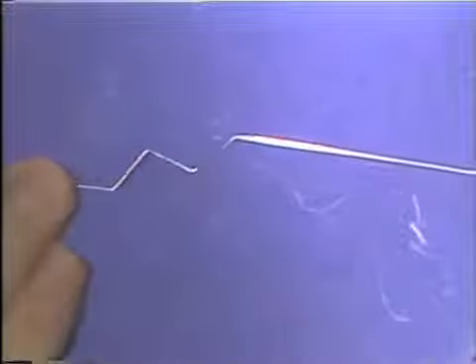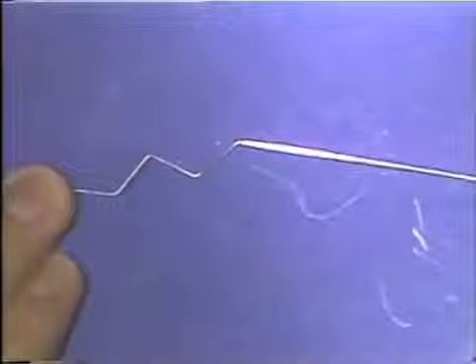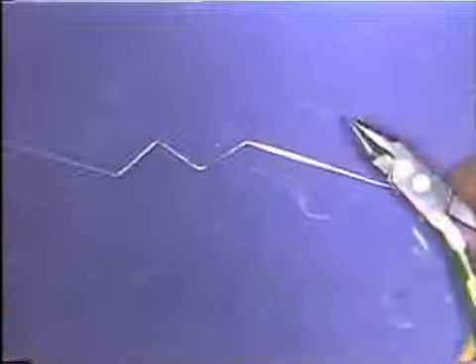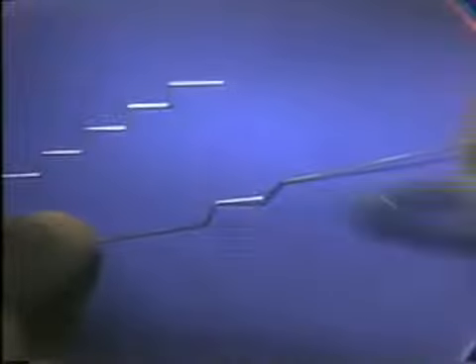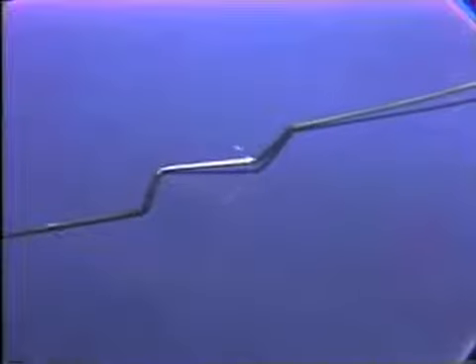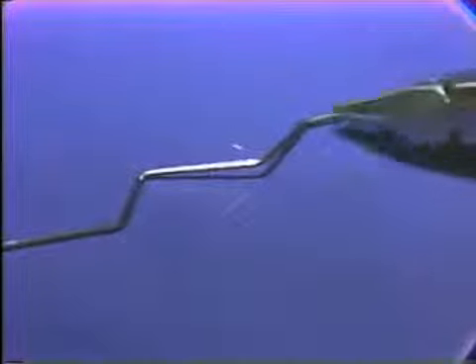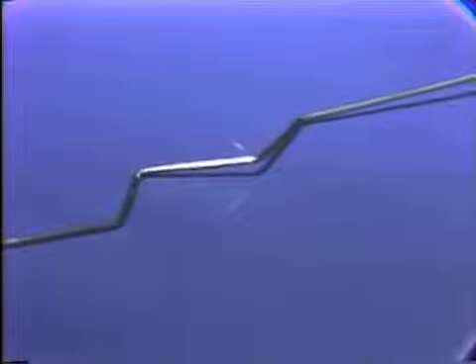Now it begins to approach flatness on the table surface. We can see, though, as you hold the wire down on the table, that a peripheral portion of the wire is now contacting the table first, preventing this next leg of the wire from contacting the table. In this situation, you make a bend in the wire to get this contact off the table, get that peripheral interference out of the way.